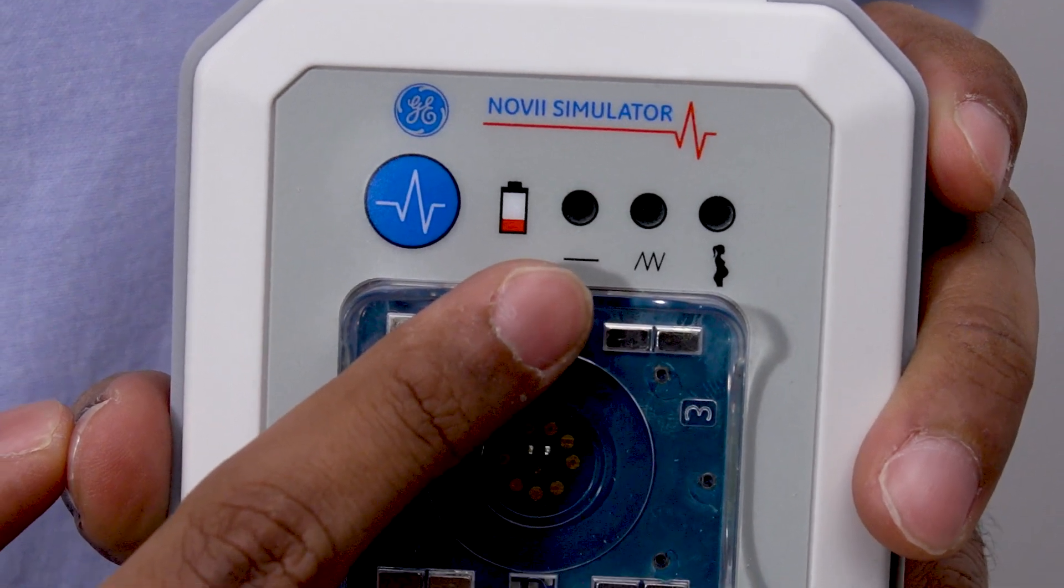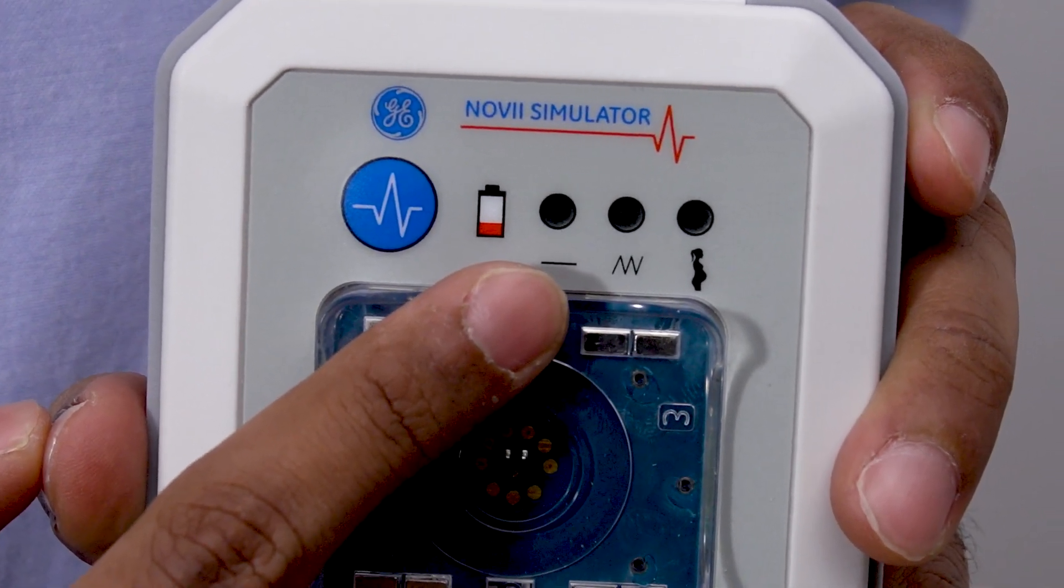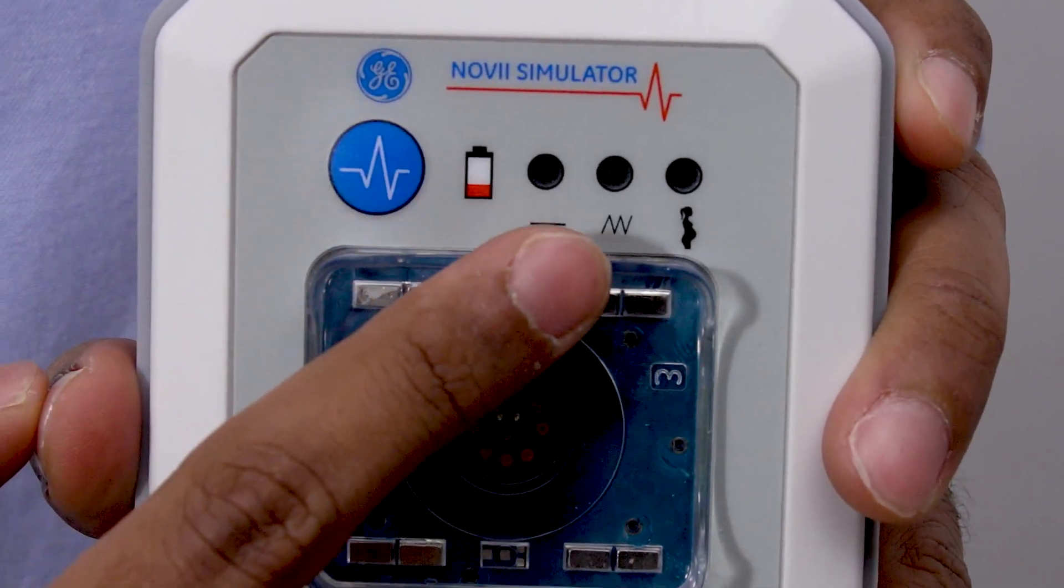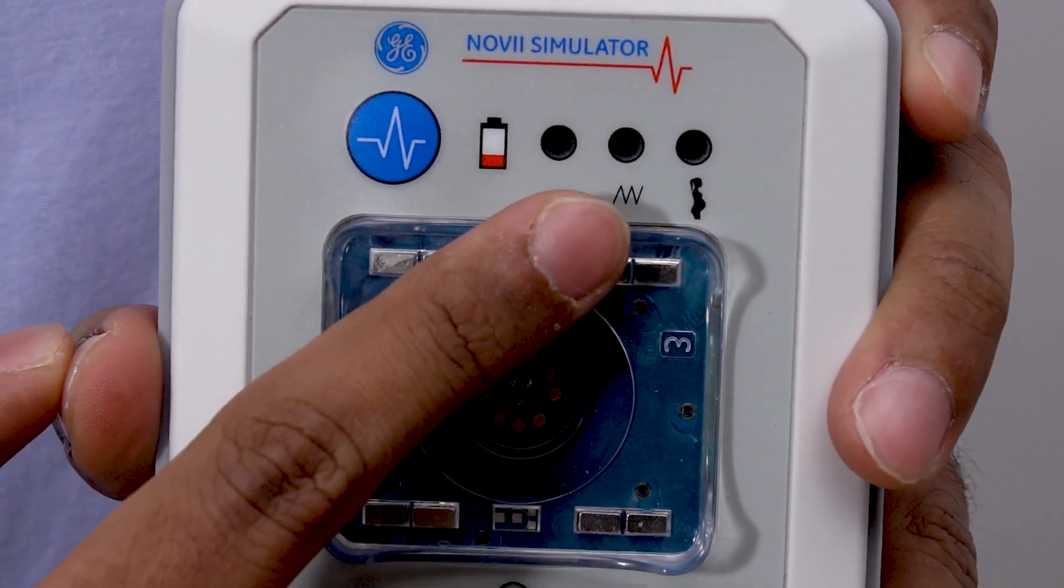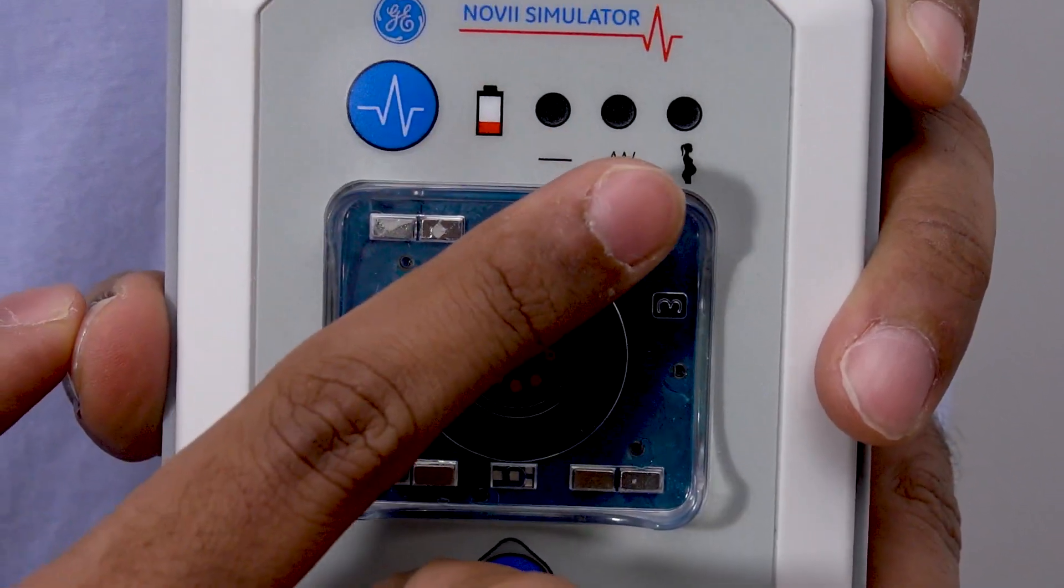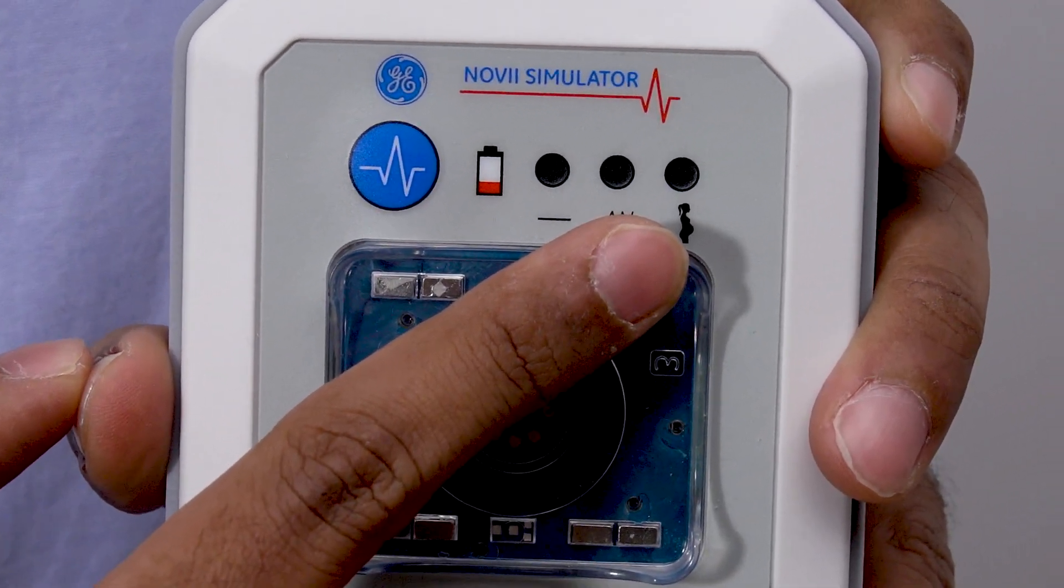Constant, which is noted by a flat-lined symbol and is the default mode. By pressing, we'll move to Pattern mode, which is noted by the sawtooth line. And last is Demo mode. We'll cover each of these in more detail later.